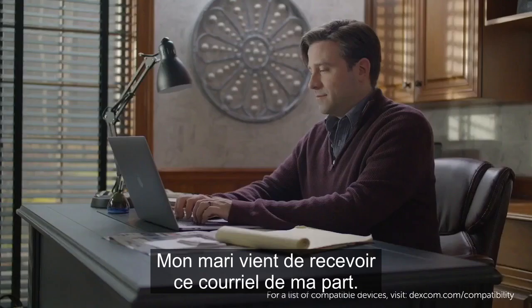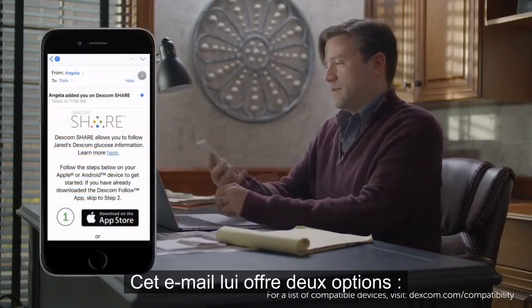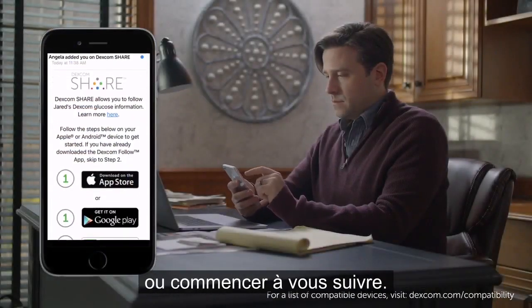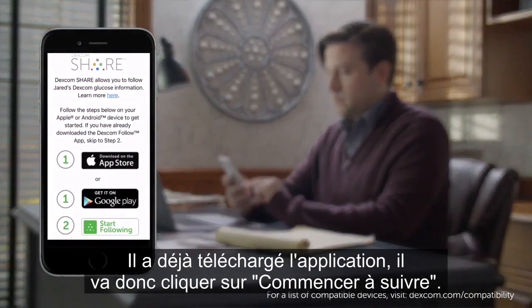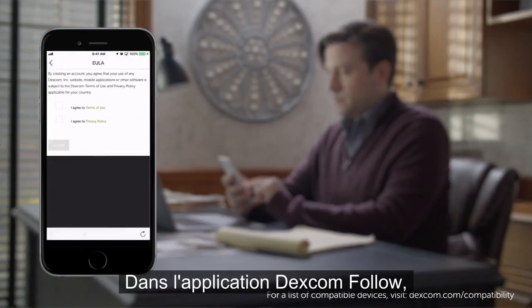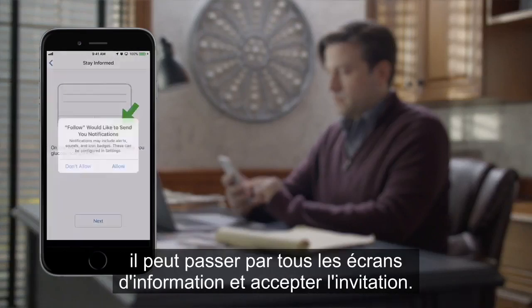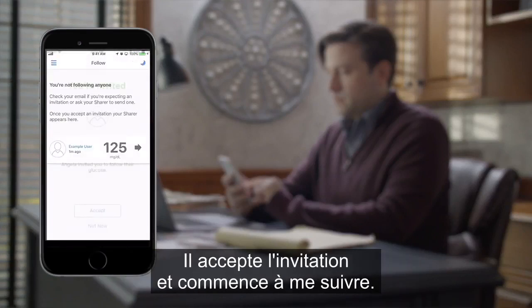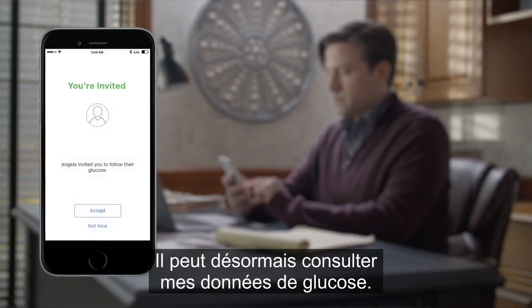My husband just received an email from me. This email gives him two options: to download the app from your app store, or start following. He already downloaded the app, so he'll click Start Following. The invitation takes him into the app. In the Dexcom Follow app, he can go through any information screens and accept the invitation. He accepts the invitation and starts following me — he can now see my glucose information.